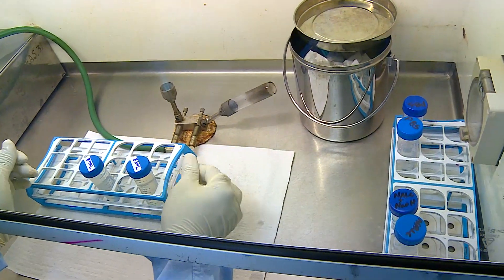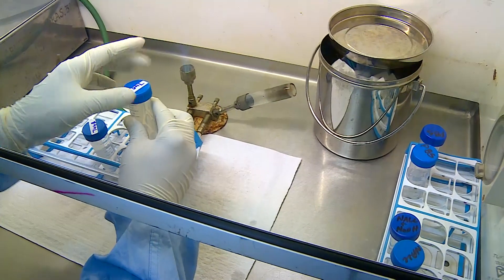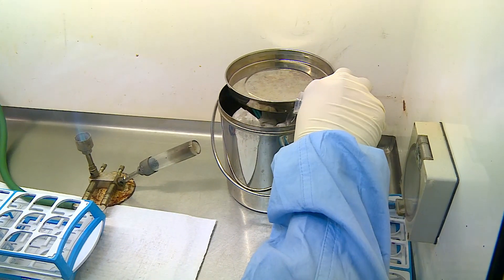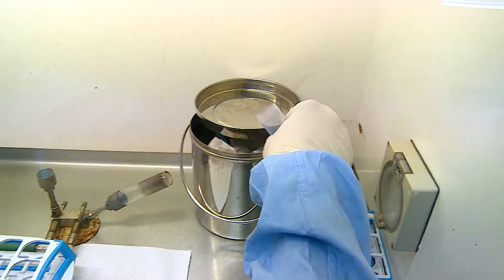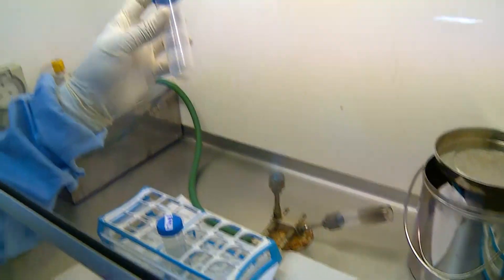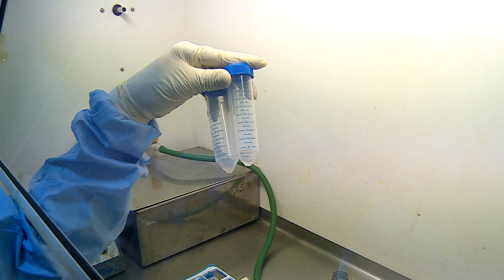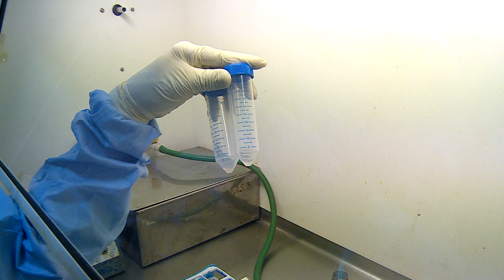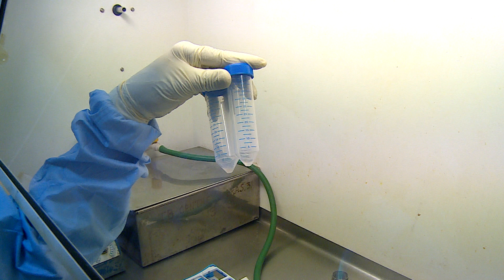Now that centrifugation is completed, the supernatant is discarded taking care not to disturb the pellet. The pellet is visible at the bottom with a little bit of phosphate buffer. The pellet is now ready and can be used for inoculation onto LJ medium or any liquid medium like MGIT 960 tubes, or it can be used for molecular testing. With this we come to the end of the video demonstration of specimen processing for sputum culture. Thank you.